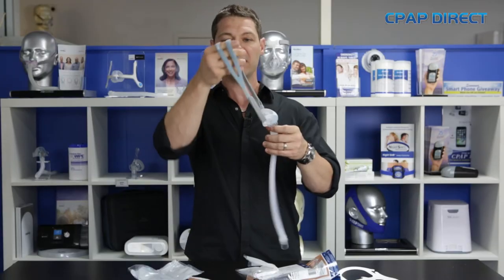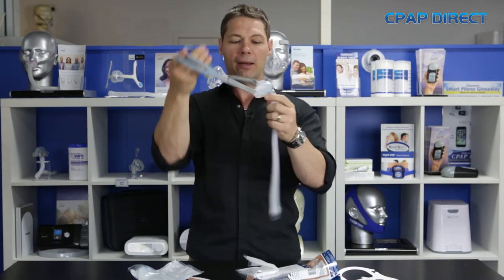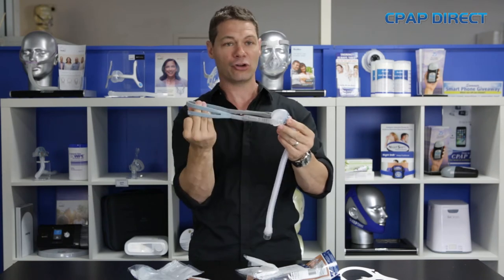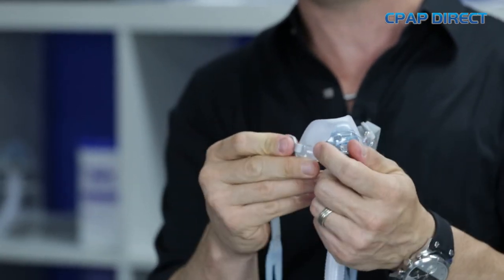You can see there are goggle-style straps on the mask, and it also has adjustability on the sides. This means it's not going to stretch and then lose a seal and not fit properly. It's got everything covered from that perspective.